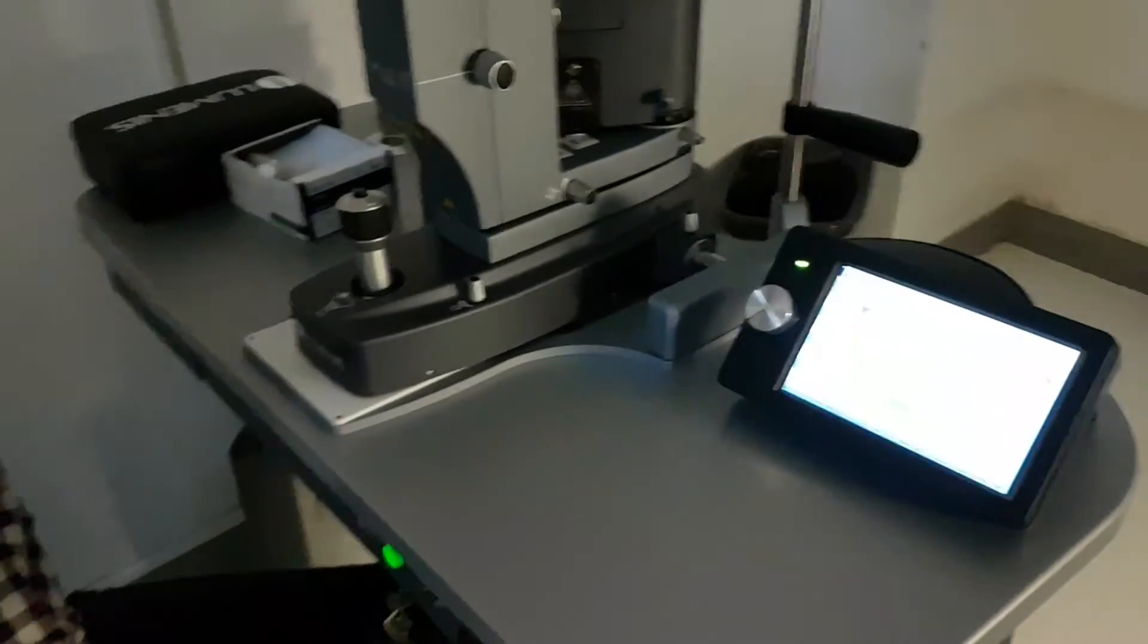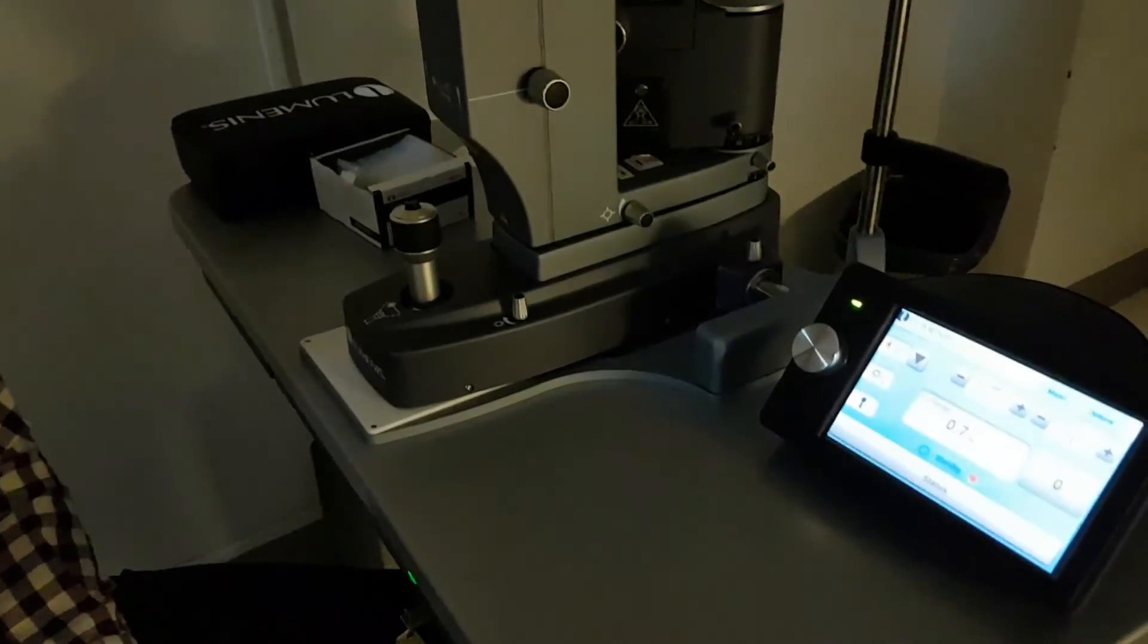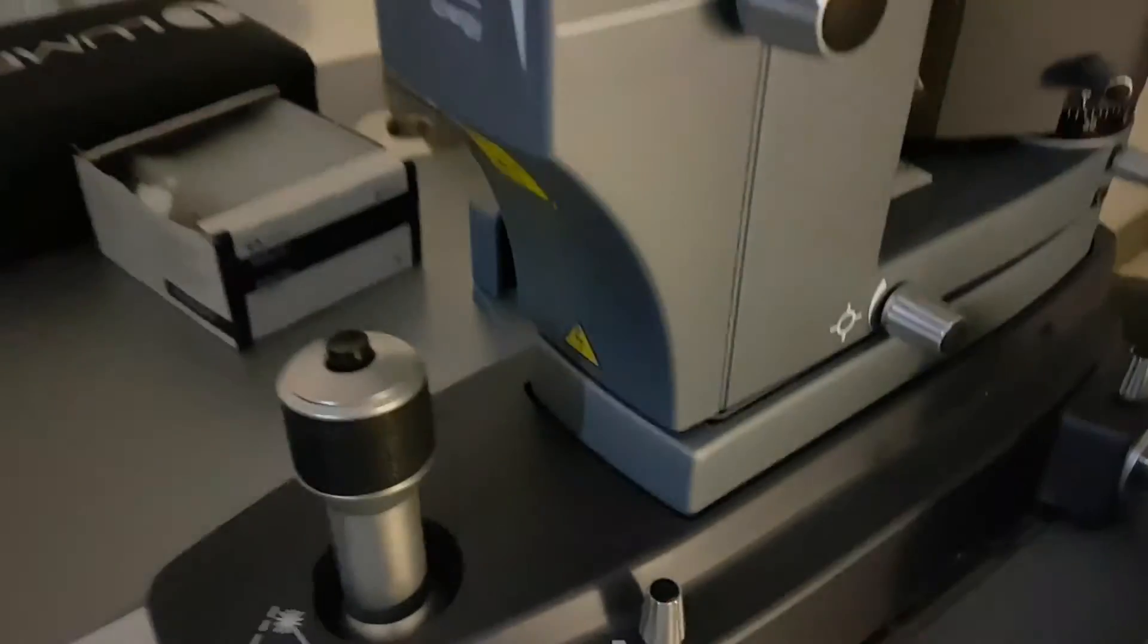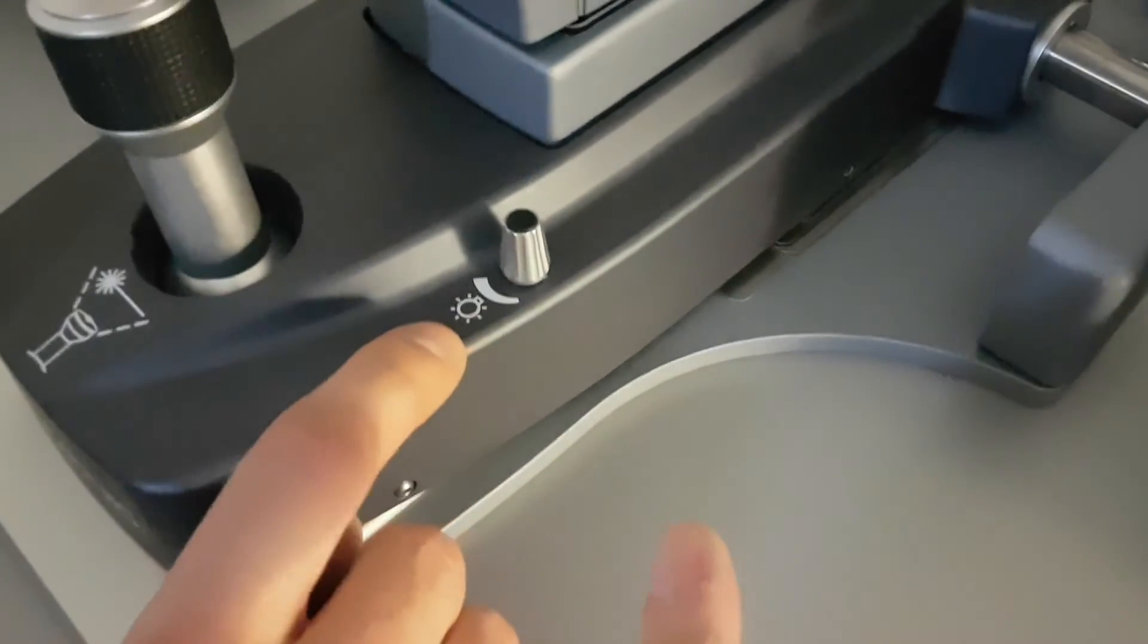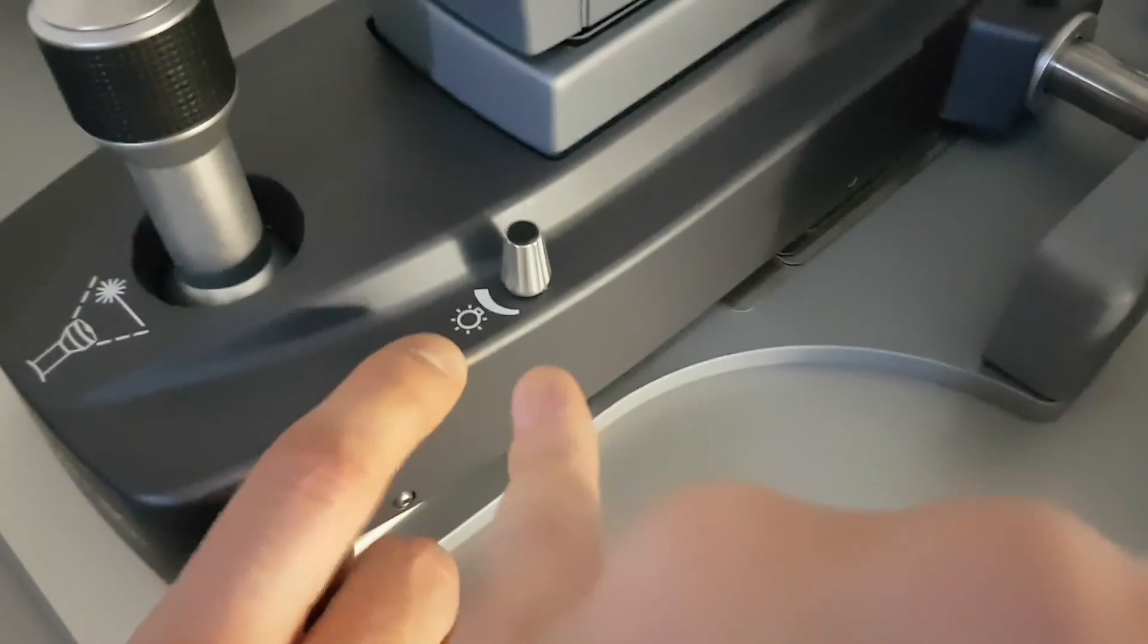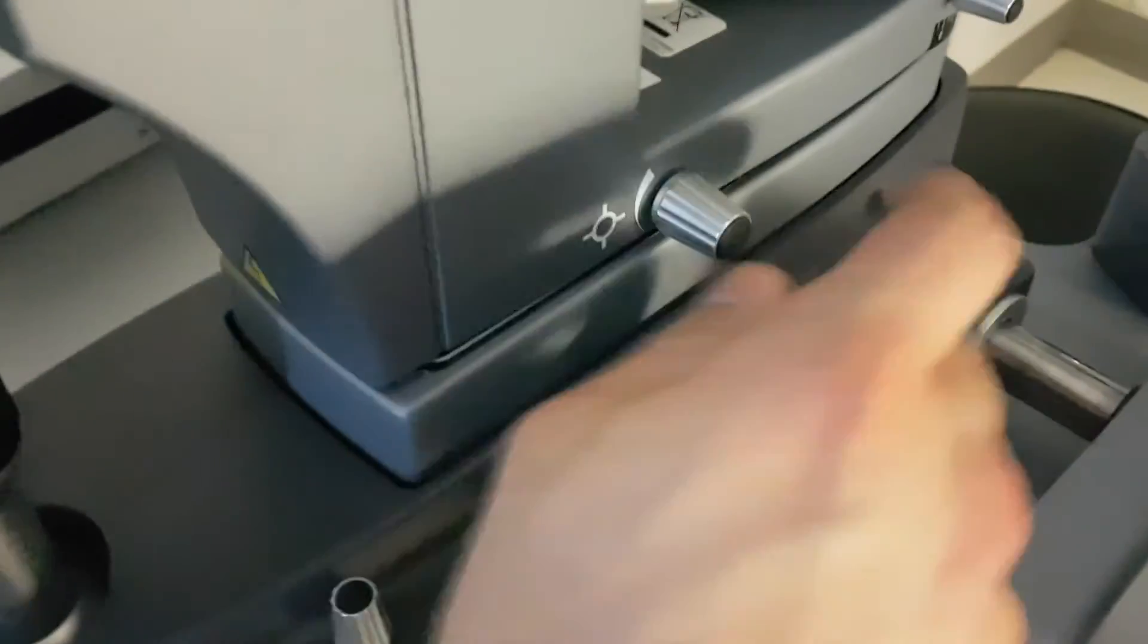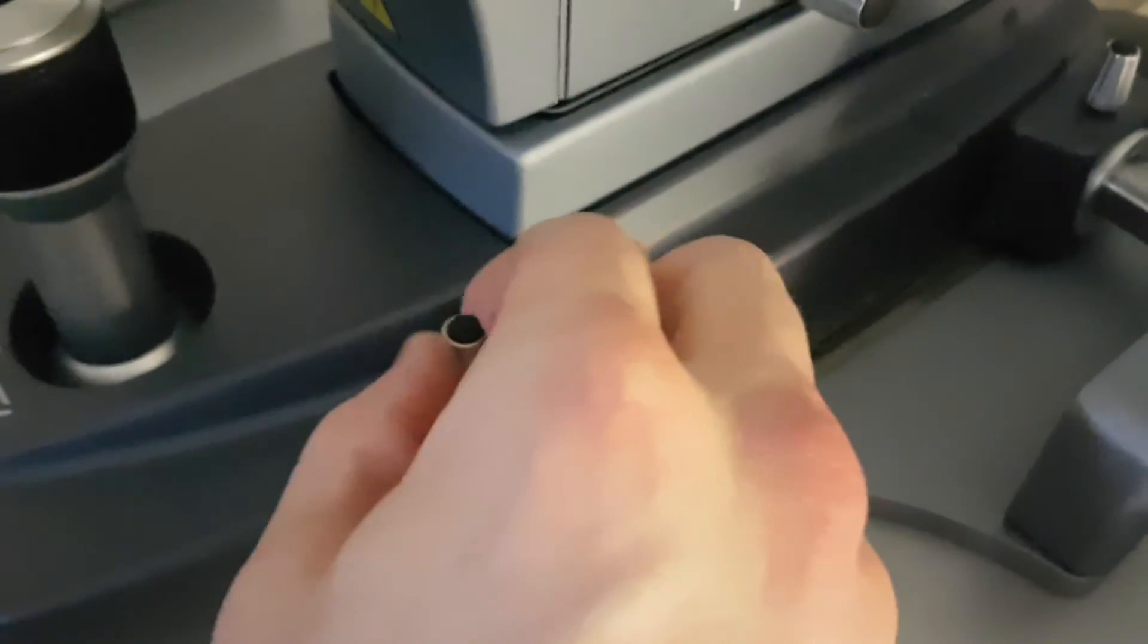So just to recap, this is the aiming beam intensity. As we said, we can also change it on here on the screen. So this is the retro illumination. I'm sorry, this is the retro illumination. So the light.